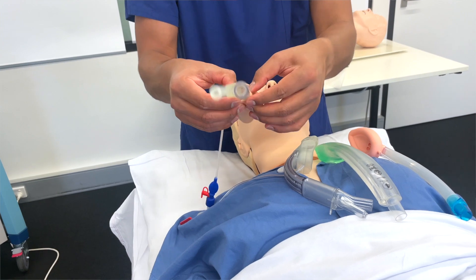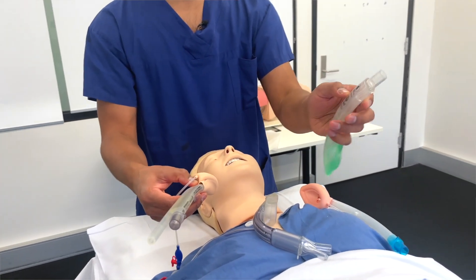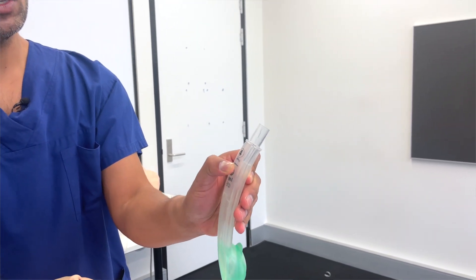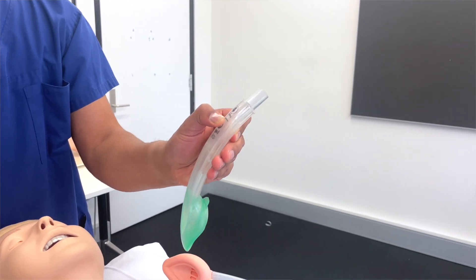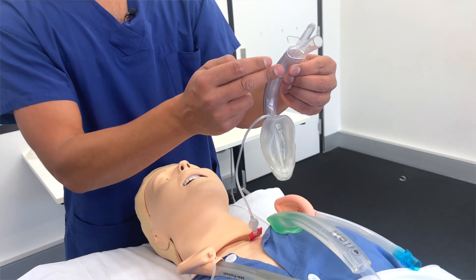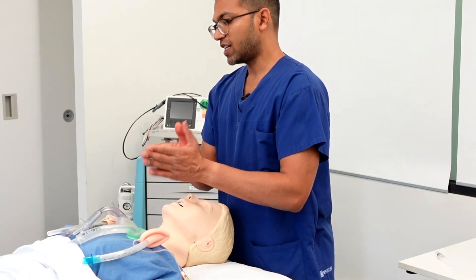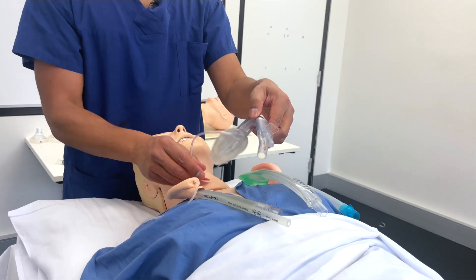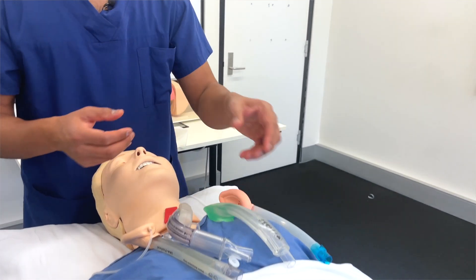Second generation LMAs often all have a bite block. With the iGel, you can see this is a very firm structure at the teeth line — it's very strong plastic, which means if the patient bites down they can't obstruct the airway. An obstructed tube is obviously a real problem for ventilation. Same with the Supreme device — it is preformed and sits with the teeth along the aperture, and that's very hard plastic as well.